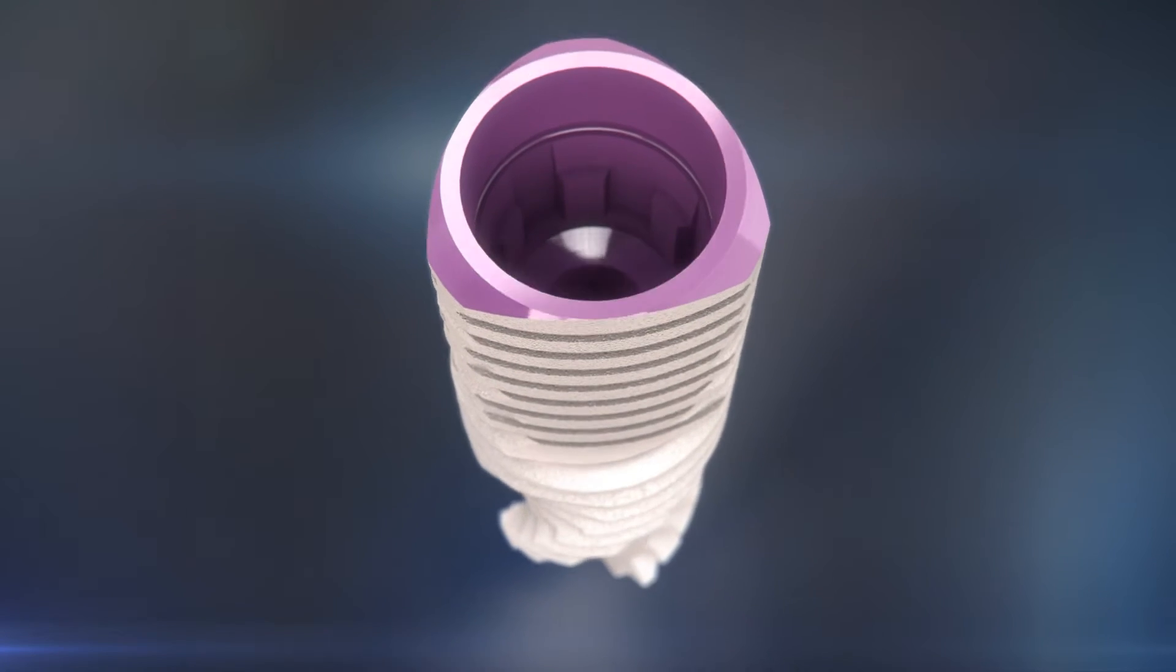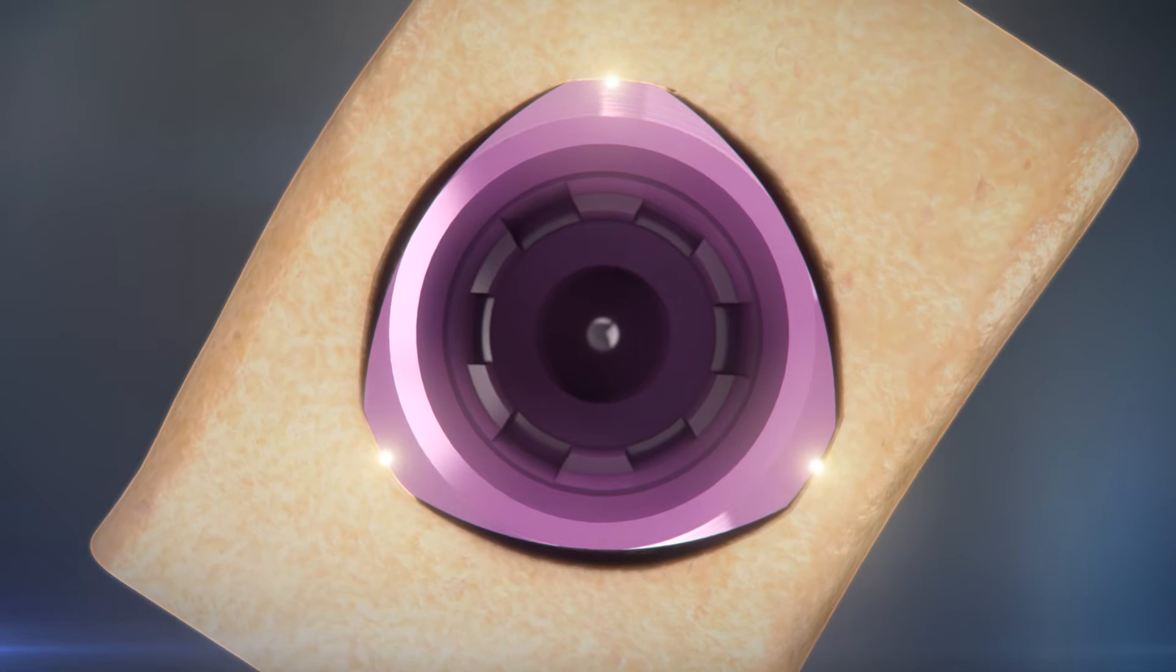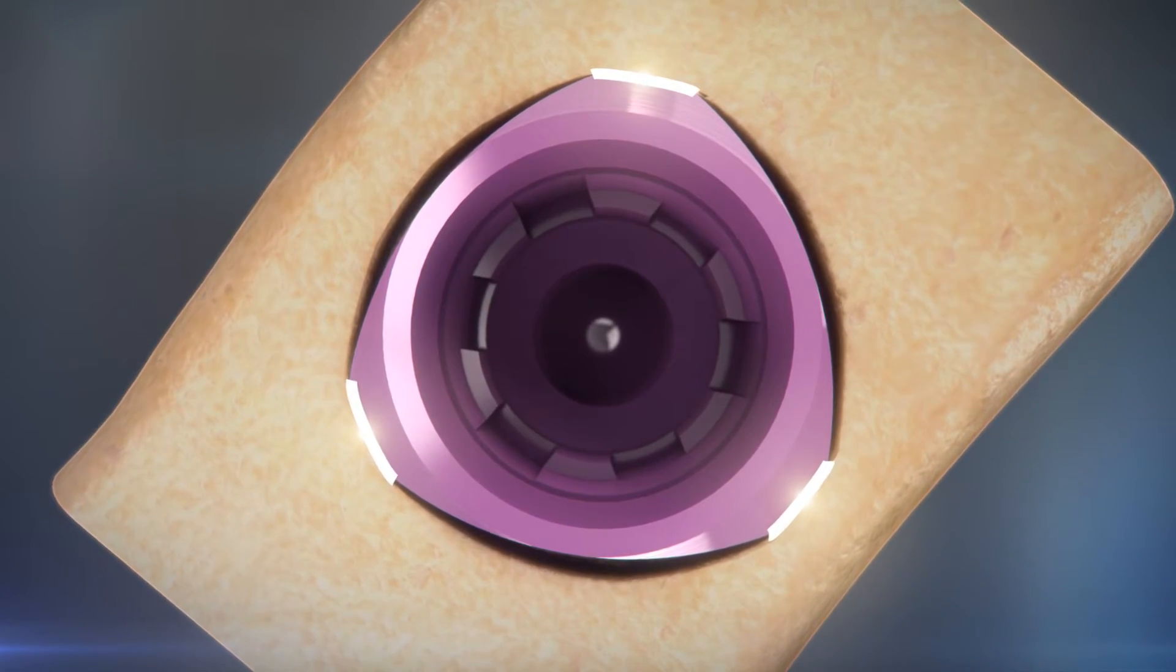The unique tri-shaped head of the implant anchors at three points, maintaining excellent primary stability while significantly reducing compression of the cortical bone.